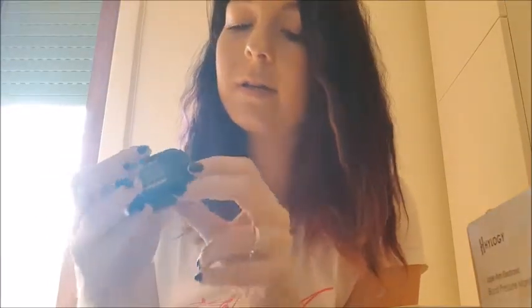Okay so this is what it looks like. It just has a power button right here, so it looks pretty simple. I guess you just hit the power button, place it over your finger, and it will tell you how your oxygen is doing. It's really light.